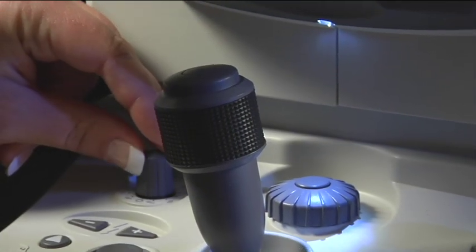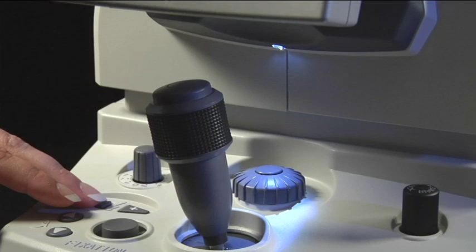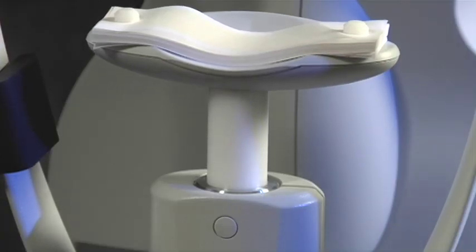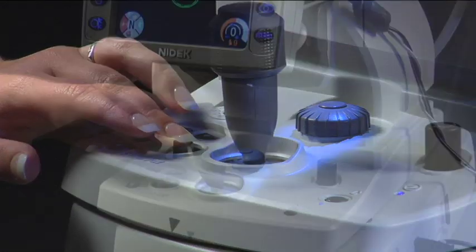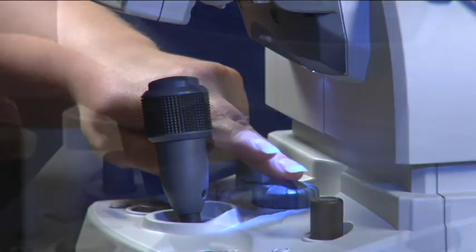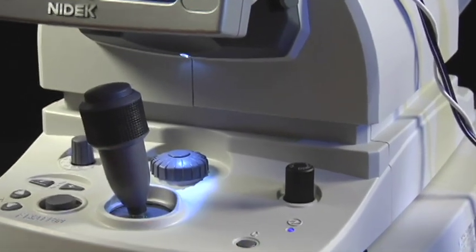Around the joystick, you will find the infrared adjustment, the flash adjustment, the chin rest adjustment, the fixation button, the fine focus wheel, the manual jump toggle, the joystick, the clear button, and the lock and brake.